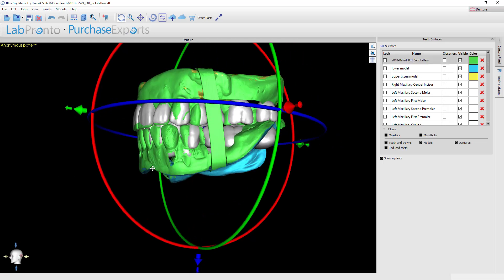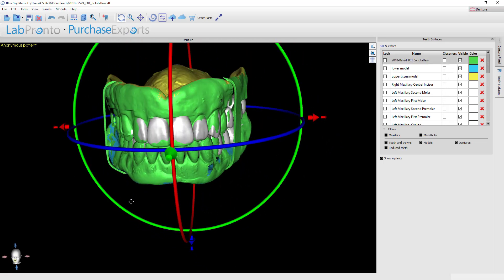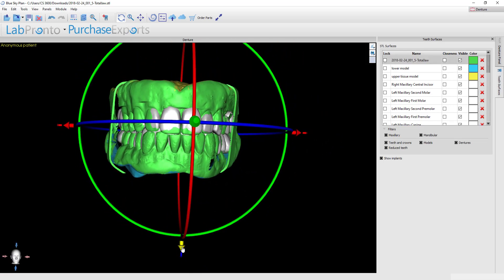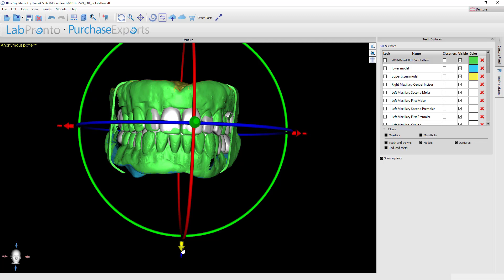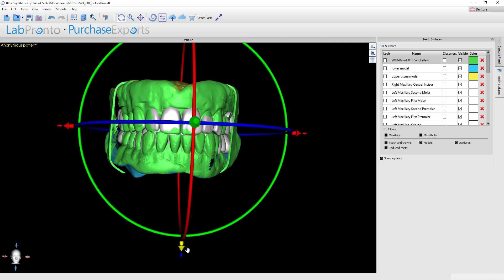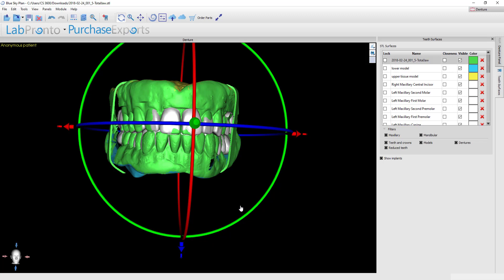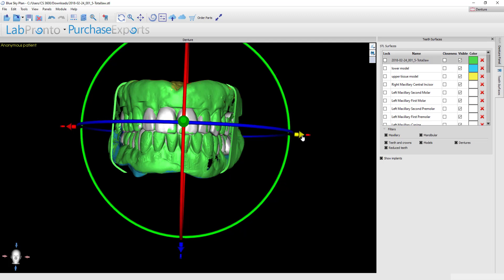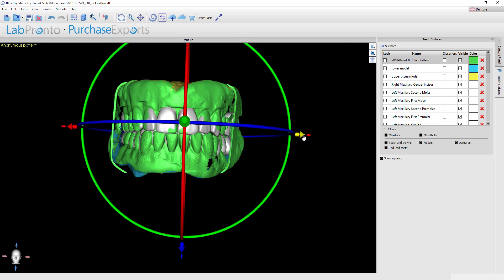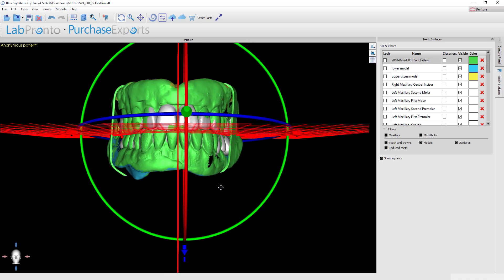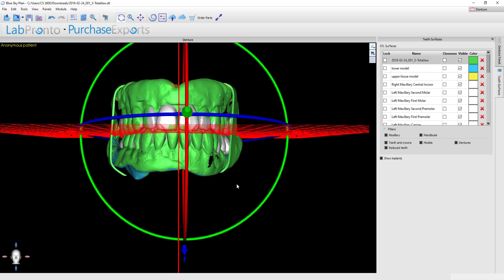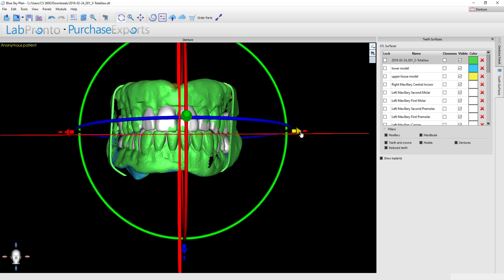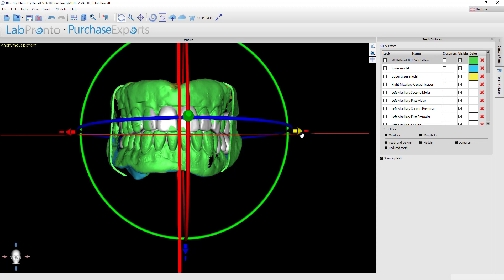Here I'm referencing the teeth though, so now I can look at them from the anterior and I can go up and down until I make the incisal edges coincide. That looks good and then finally you could reference the midline and try to line the midlines up. You've always got the grid which you can turn on and off. If I turn this back on now you can see that the grid gives me an indication of where I need to go right to left to make this all align.